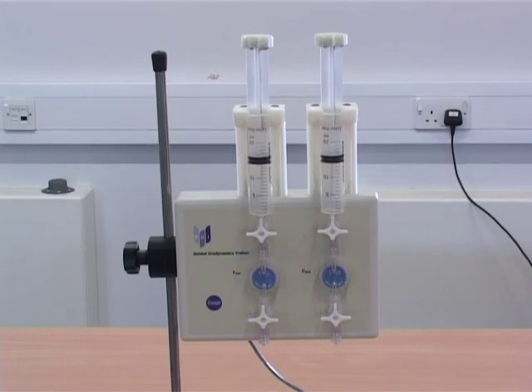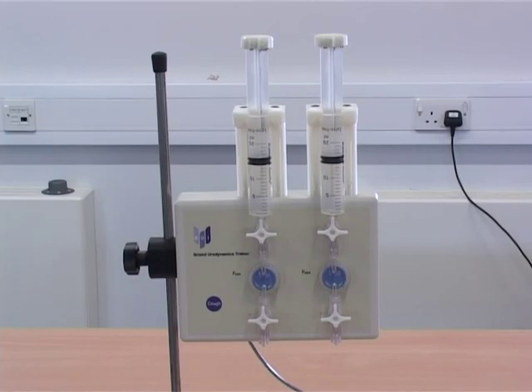The Bristol Urodynamics Trainer can be used to enhance the skills necessary for good urodynamic practice and diagnostic quality for patient benefit.